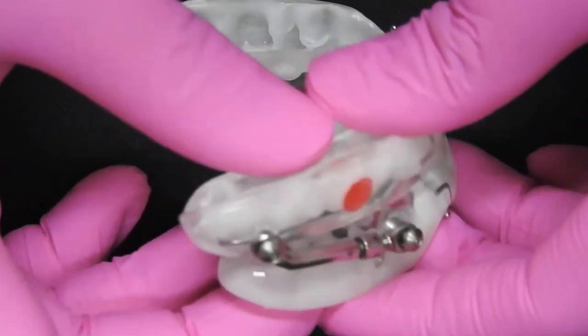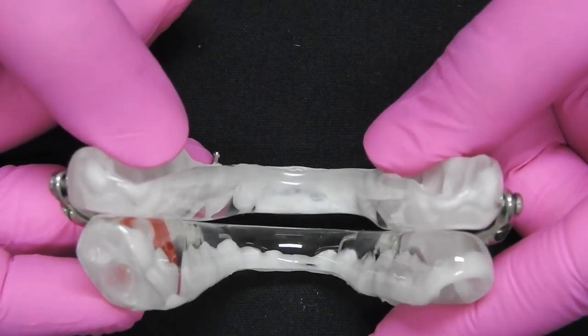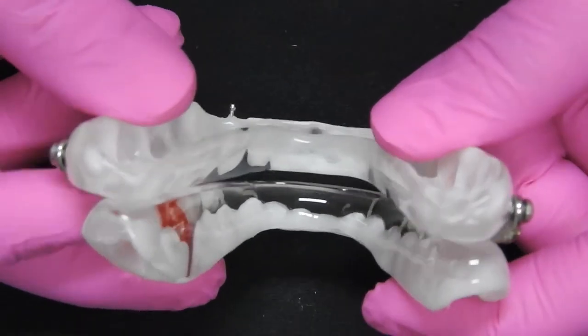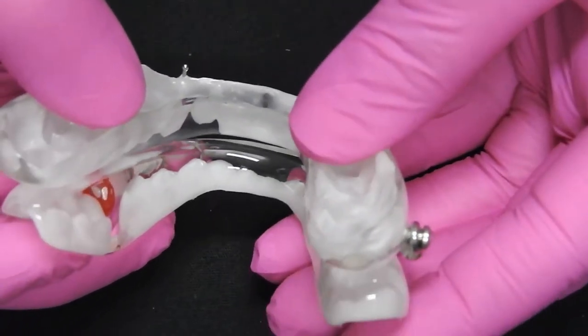Titration of your Dynaflex Herbst. Position your device as you would place it in your mouth, and locate the right side of your device.